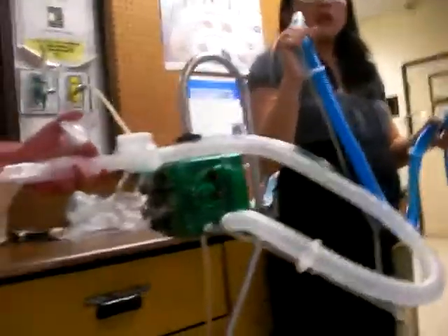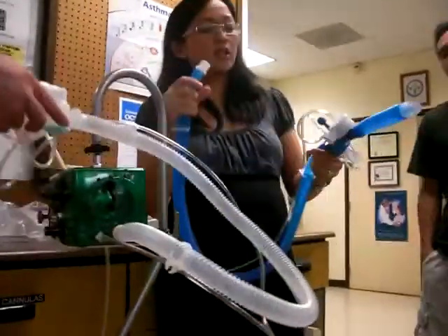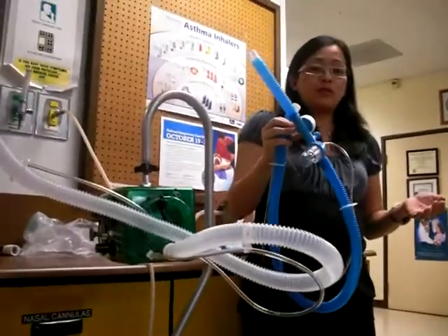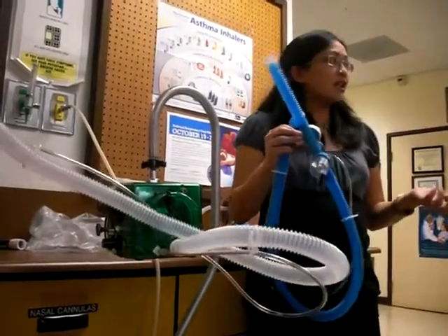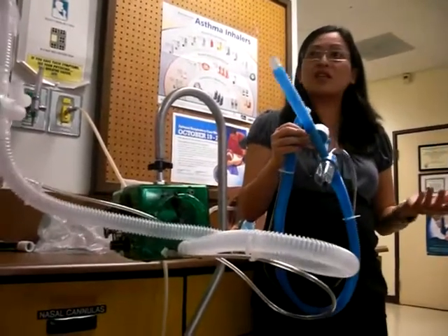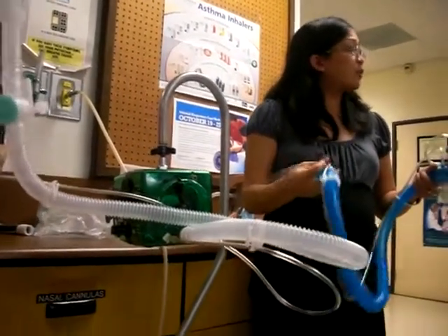Is there any difference between the blue and white, or just color? It depends — they work the same way, but the price is different. Because you're not going to be doing this for a while, you're going to forget the first time you actually see it. You'll say, 'I went over it in the lab, but I haven't really assembled it in like two semesters, so can you go over it again with me?' That's perfectly fine to say instead of pretending you know or trying to figure it out on your own. I always ask for help — they prefer that you ask for help.